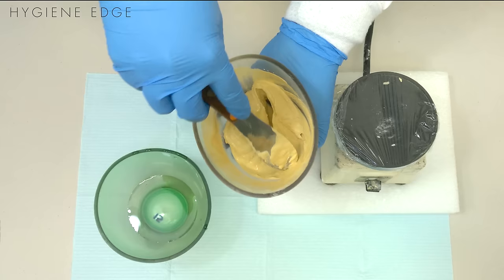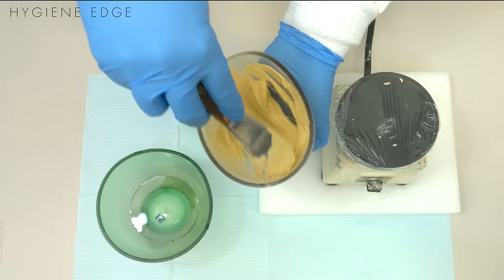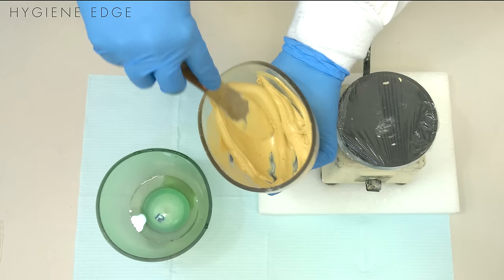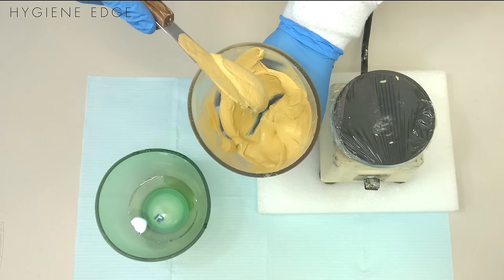You also want it completely mixed, no powder left in the bowl. Put lots of pressure against the side of the bowl to get all those powder and air bubbles out.